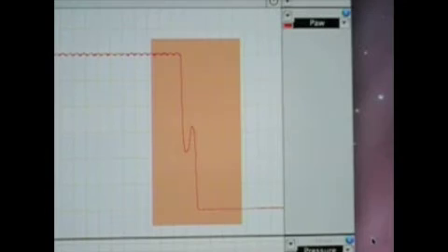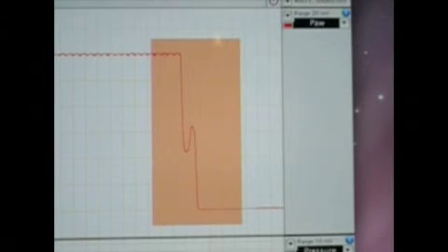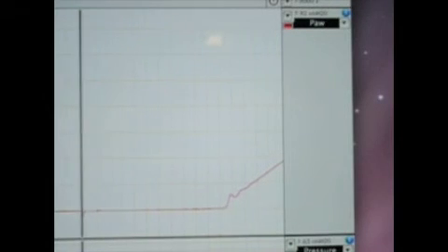Click OK, and now you want to start again. And just to double check your calibration, I will plug the cord back in, and this should go all the way back up to 30. And now it is exactly on 30, so that is how you calibrate your pressure.